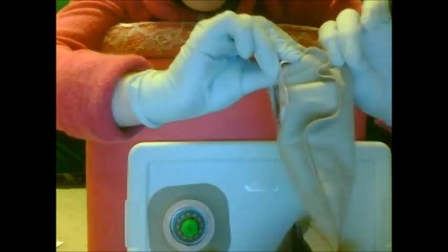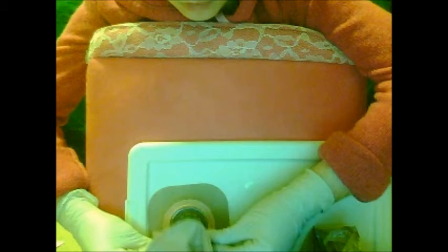Just snap it closed. If you did it right, you can fold that part under the cloth. Just snap it on like Tupperware. It'll be kind of difficult to line it up correctly for your personal preference.